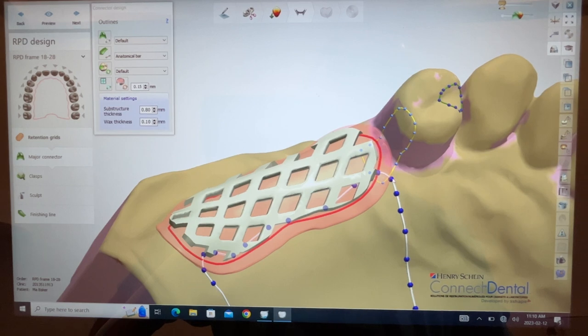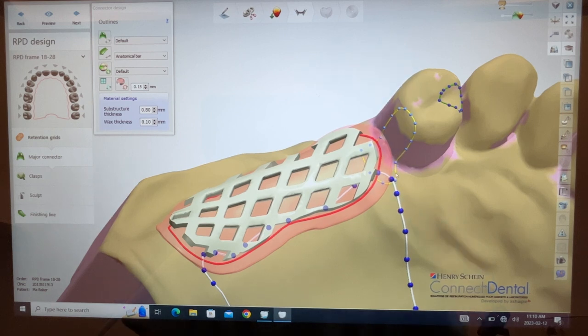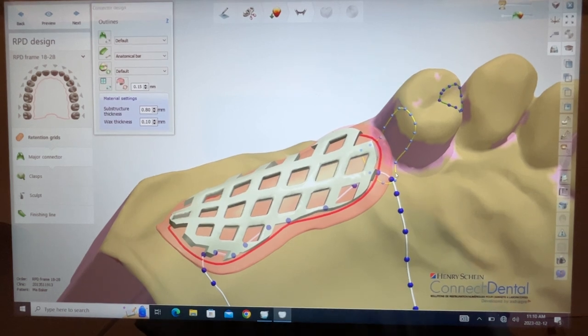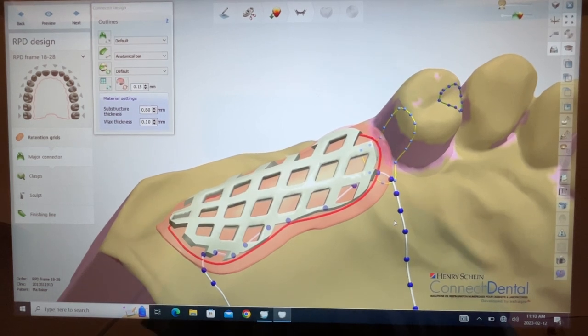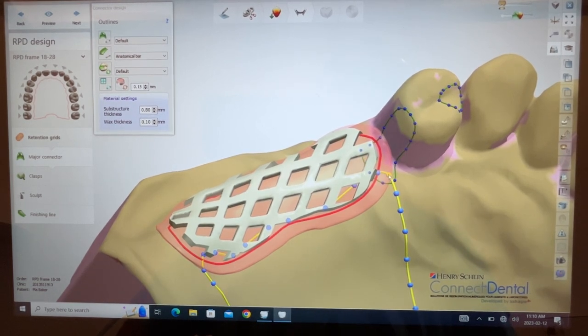This is going to be a critical area here. I think I want to come into like this, and then that I'll just use the rest now as an extension of my major connector, which I guess I could go back to major connector and move that dot up, right?